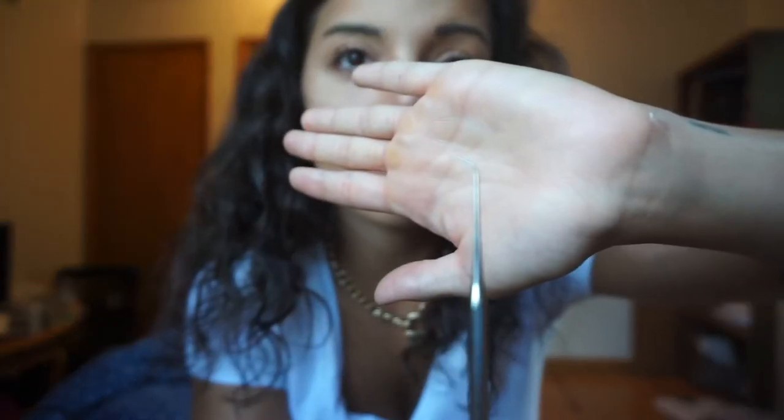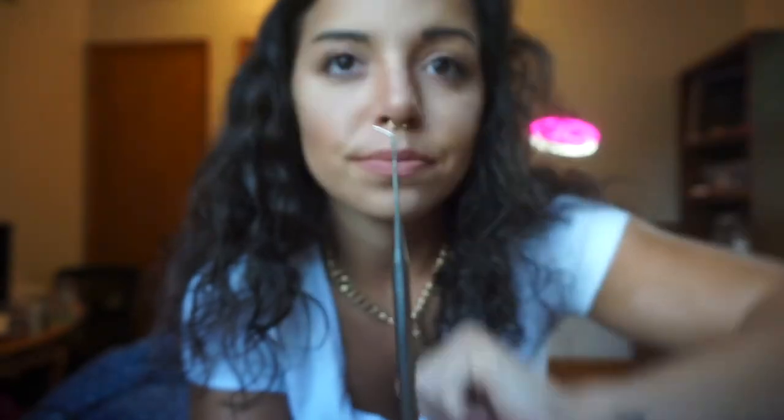Next are the straight instruments. First and foremost is an explorer — this is a tiny little instrument and it's what we use to take the colored ties off. Also, when you get braces off, we scrape the glue off and this little guy can tell if there's still glue on your teeth. We'll scrape your tooth with the explorer, and if it shows gray on your tooth, that means there's still glue there.